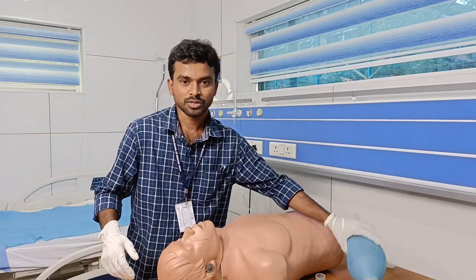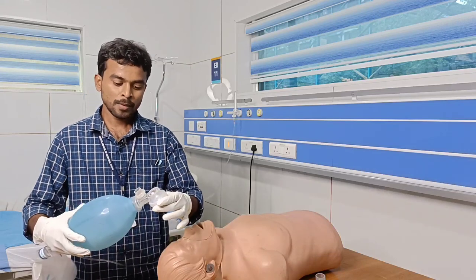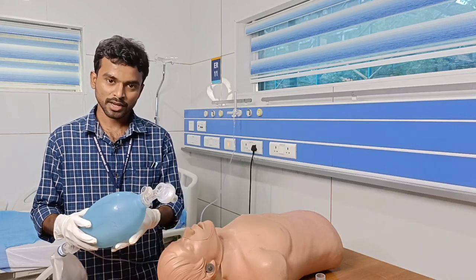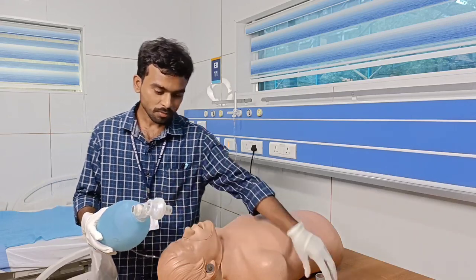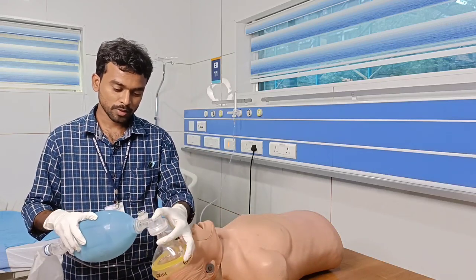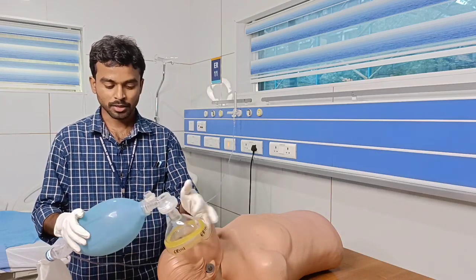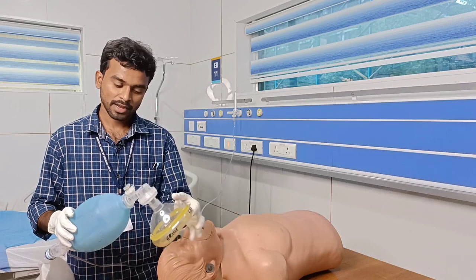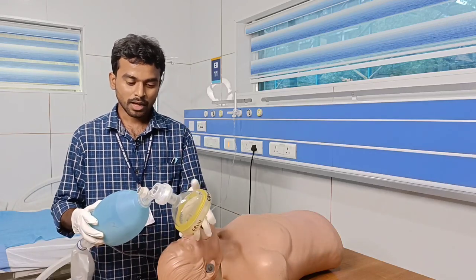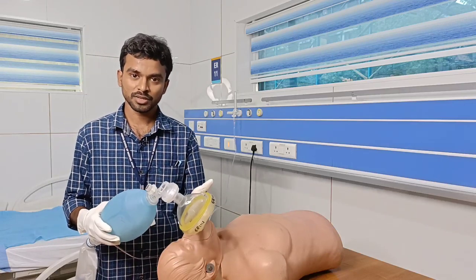Before going into the topic, we have to check the functionality of this AMBU bag or bag mask ventilation. We will be considering why we call this instrument bag mask ventilation — it has a mask, valves, and a self-inflating bag. It is called bag mask ventilation, bag valve mask device, or AMBU bag, which stands for Ambulatory Manual Breathing Unit.